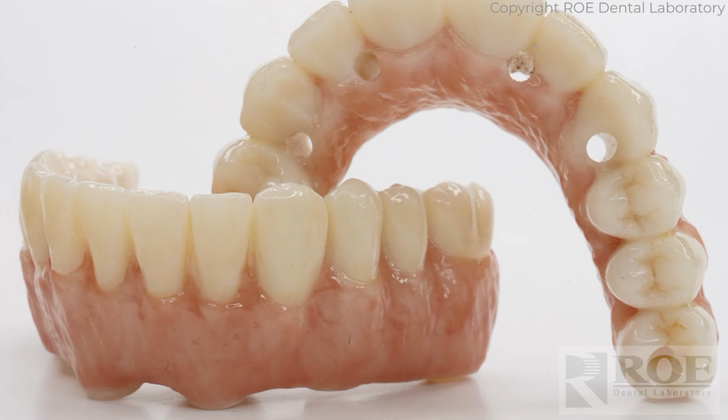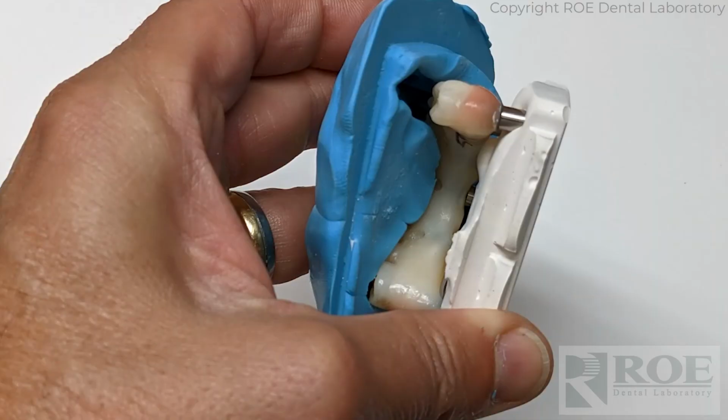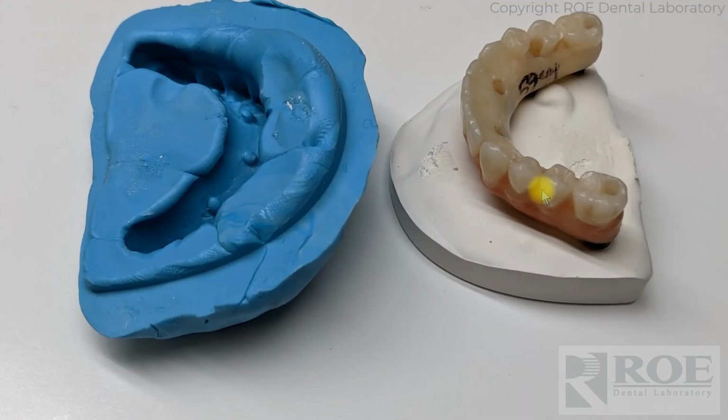So pretty simple process, very light on the laboratory work, not a lot of lab work here involved, but the patient gets to go home with their prosthetic that day, and you get to send the records to the laboratory. So think of this, the patient gets their prosthetic, but you get to share everything that we need to make a prototype, and that is the RAPID Appliance.